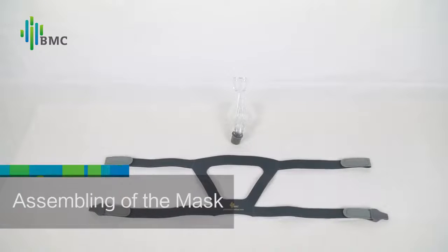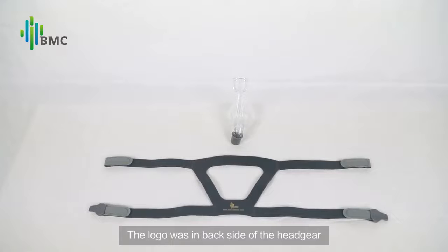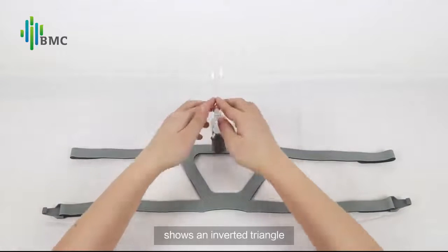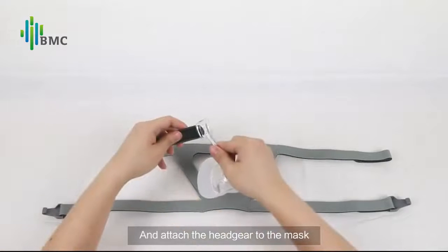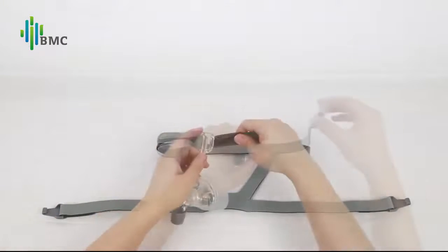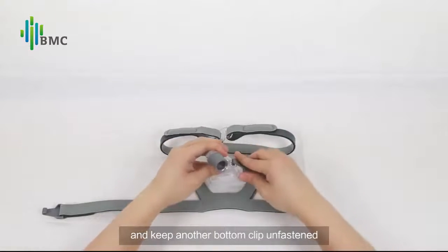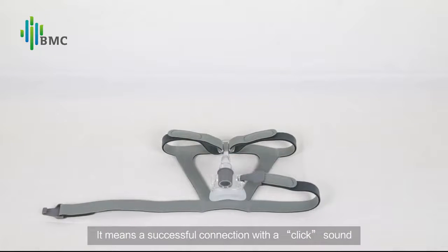Assemble the mask. The logo is on the back side of the headgear. Spread the headgear on the table, making sure the glossy surface is upward, showing an inverted triangle. Attach the headgear to the mask. Connect one bottom clip into the mask frame and keep another bottom clip unfastened. A successful connection is indicated by a click sound.